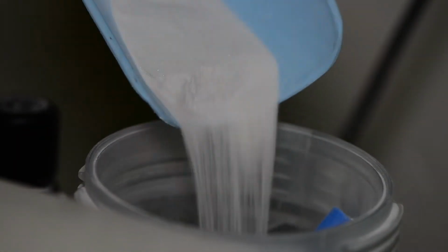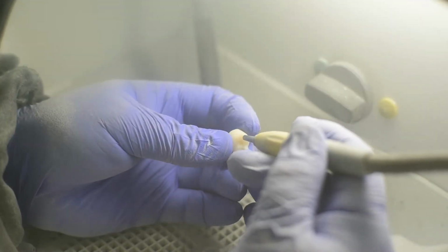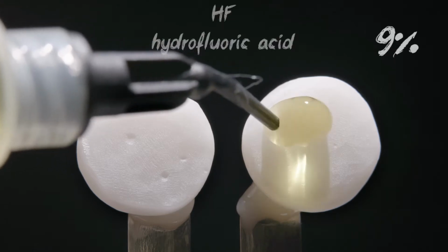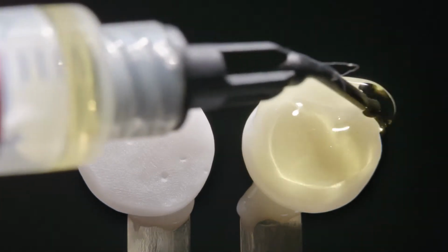In the laboratory, the hard tissue side surface of the restoration is sandblasted with a sand size of about 50 microns. Further in the clinic, the surface must be treated with 9% hydrofluoric acid for 20 seconds. Find explanations in one of the following videos.